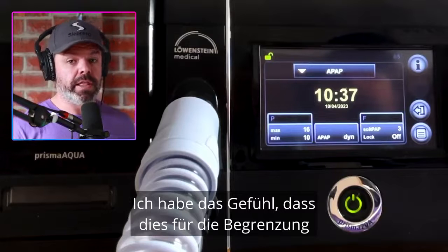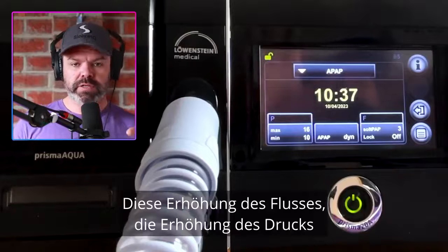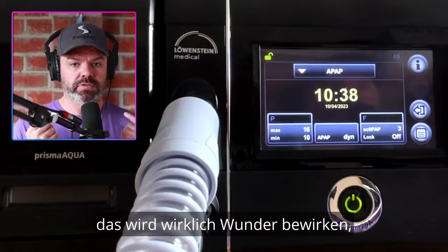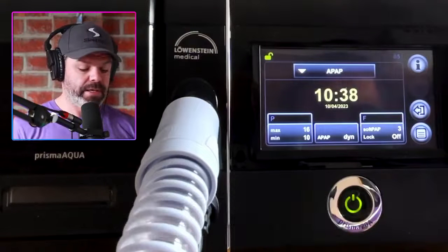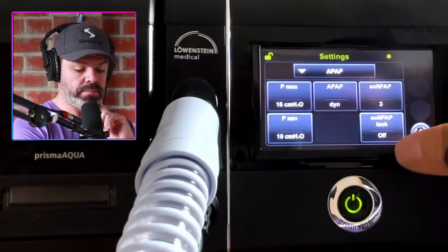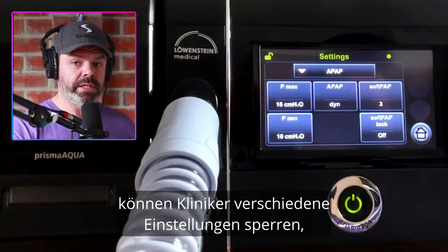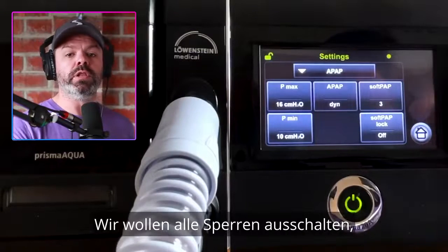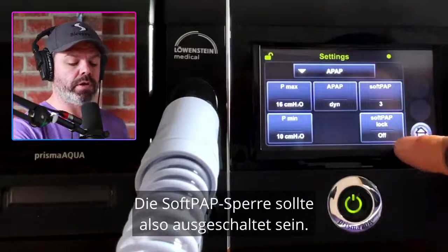I have a feeling this is going to be really handy for airflow limitation — that increase in pressure on the inhalation, that push, I think it's really going to do wonders. I can't wait to check out the data on that. Moving on — SoftPap lock. Because we're in the clinician settings, clinicians have the ability to lock different settings if they choose to. We want to turn all the locks off so we have access to all the settings. So SoftPap lock should be off.